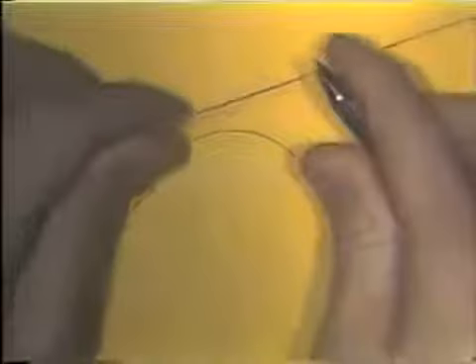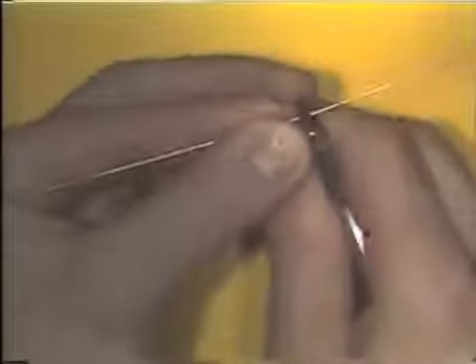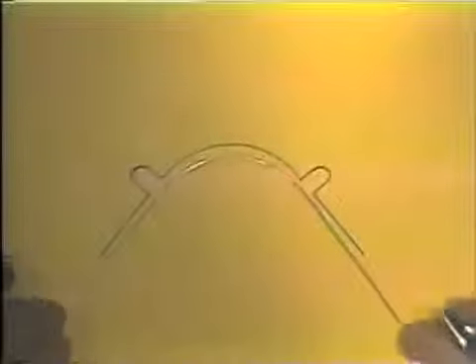To bend this exercise pattern, it is best to bend the curved portion first. This is done by making a series of small bends in the wire very close together, moving the plier along the wire and making a smooth curvature. This is a lengthy procedure. It will take at least 20 minutes to bend this curved portion of the pattern. We have prepared a curved portion that fits the pattern.